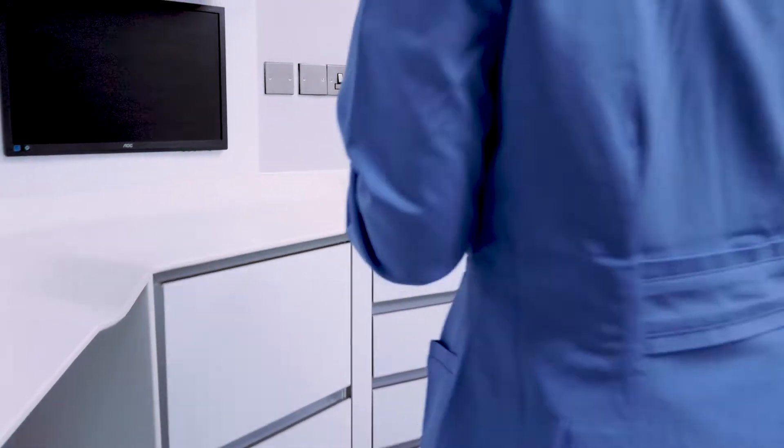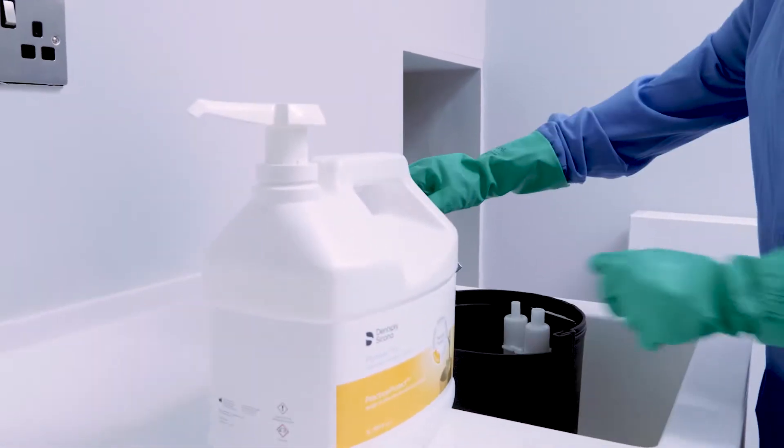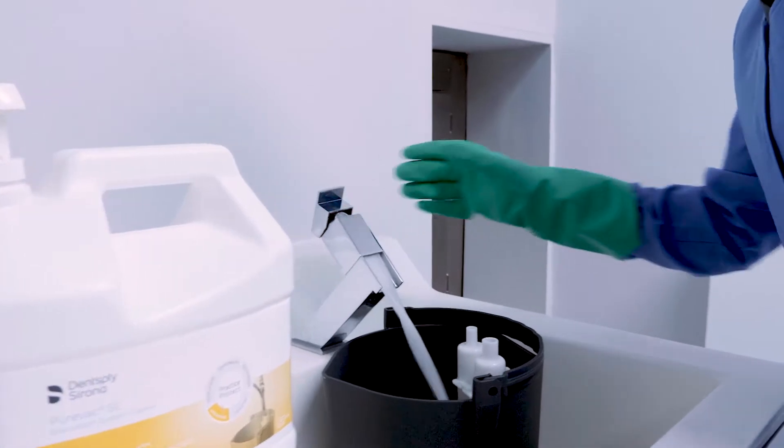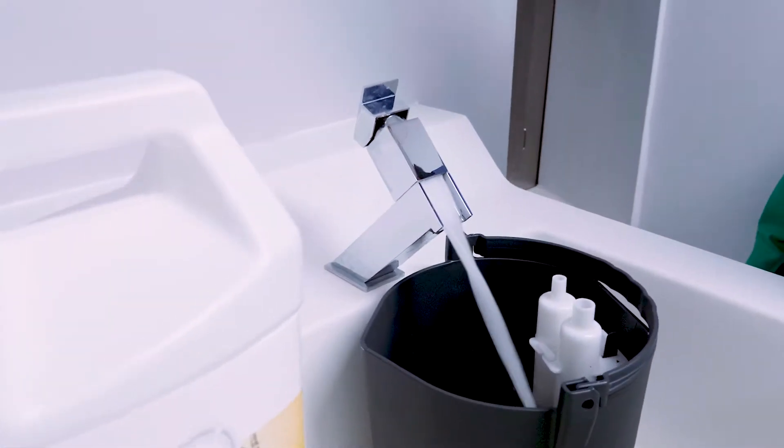Improper cleaning and maintenance of a dental evacuation system can lead to costly downtime and expensive repairs. Best practice is to clean the evacuation lines in each operatory at the end of every day.